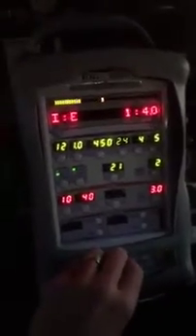So the patient's not getting as many breaths. What's the difference between dropping the respiratory rate versus dropping the I-time? If I drop the respiratory rate and don't manipulate the tidal volume, I end up dropping minute ventilation. Minute ventilation is the product of respiratory rate times tidal volume, so I run the risk of under-ventilating the patient — hypoventilating them — and allowing their CO2 to rise. You can see that here on the ventilator: 5.1 liters per minute.